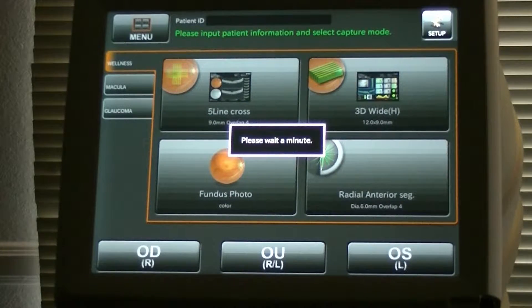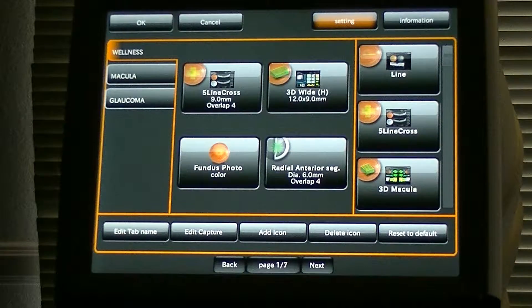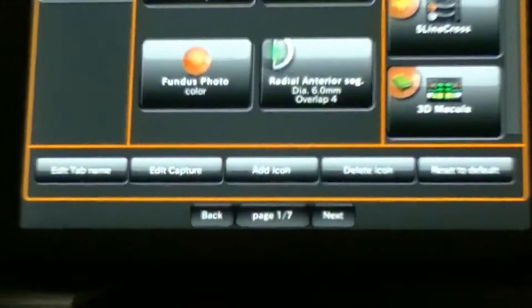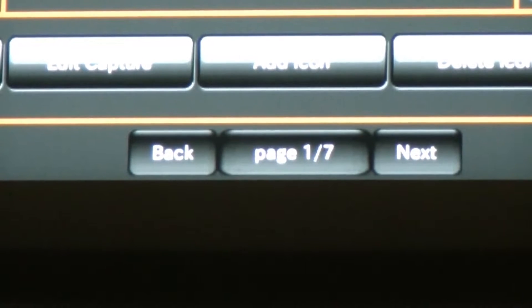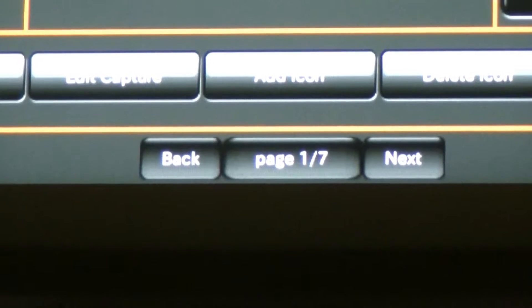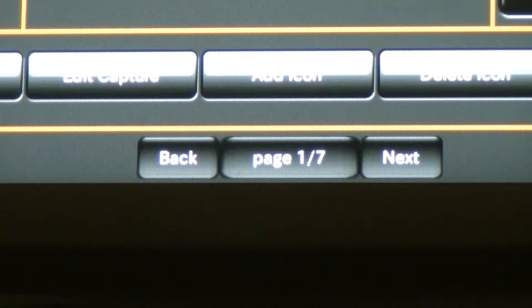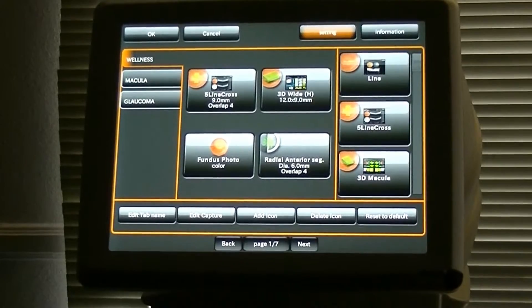And when you do that, you're going to see this menu come up. You're going to see right here page one of seven. The regular setup, if you just click that and don't hold it down for only three or four seconds, you get a setup menu that will come up one of four — four pages. So you get three additional setup menus when you hold down the setup menu and enter the serial number. Now we're going to zoom back out and I'll show you where that date and time is.